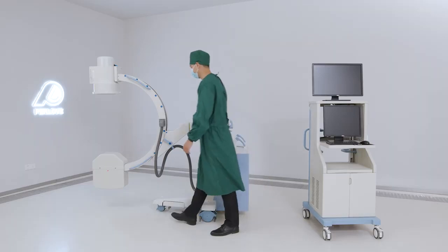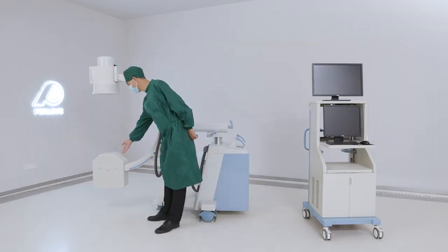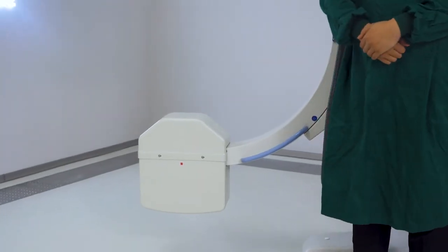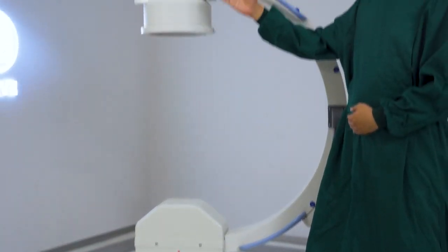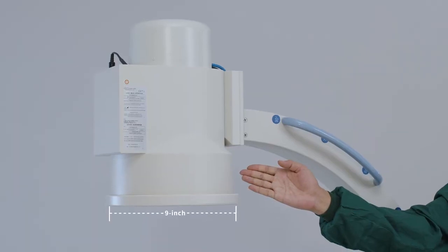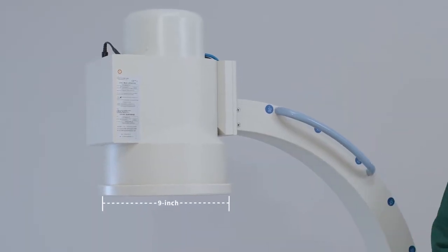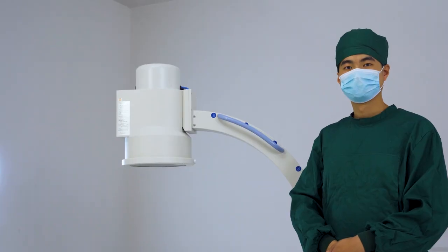This machine is equipped with Canon 9-inch image intensifier, with 3-view and million-pixel digital imaging system to ensure the excellent quality of image.